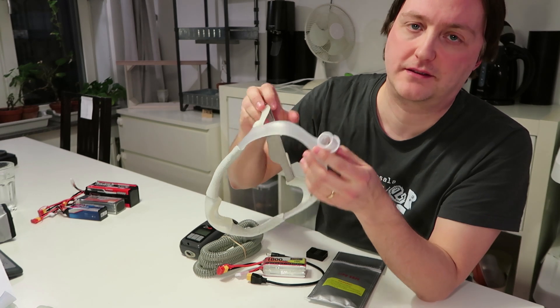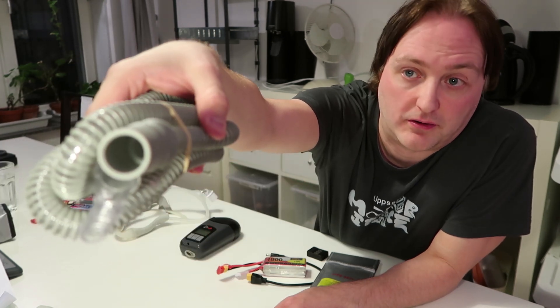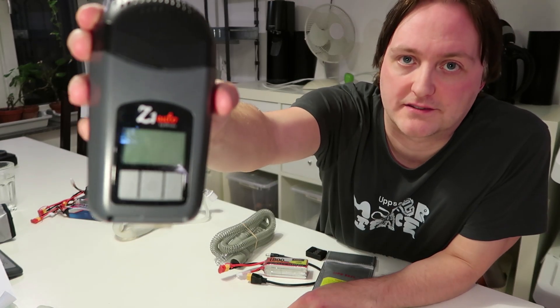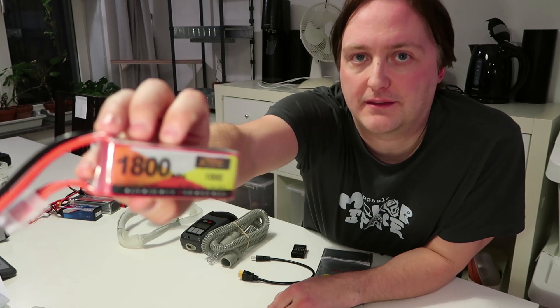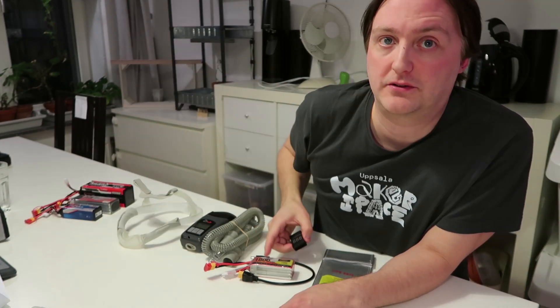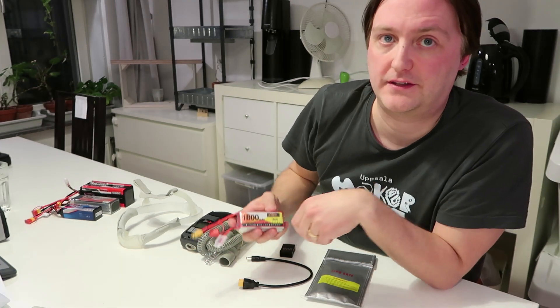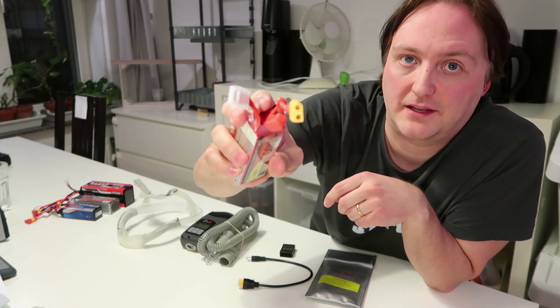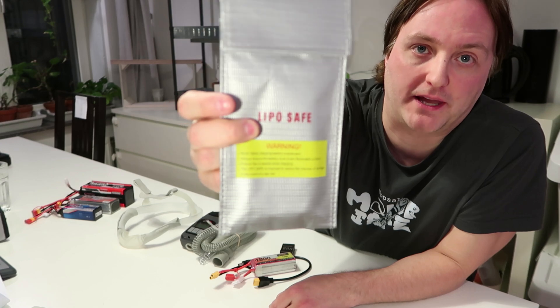Here is the full set of equipment I use for sleeping one night in a tent. First, my normal mask which uses a 22mm connector, and a 1.2m long hose with a 22mm rubber connector. The travel CPAP itself is a Z1 Auto made by Breas — it uses 15V power. This is a 1.8Ah 15V LiPo battery that lasts me 8 hours of sleep. There's also a small battery monitor that beeps when the charge drops too low. All batteries shown use a standard XT60 connector. I also have a short adapter cable to connect the battery to the CPAP, and a protective bag for the battery.